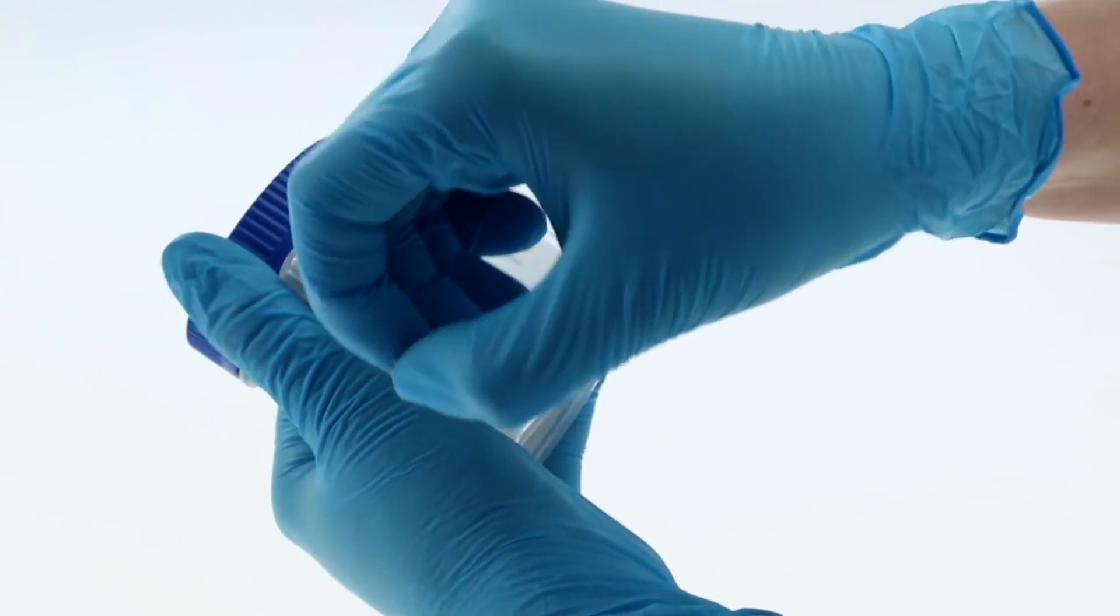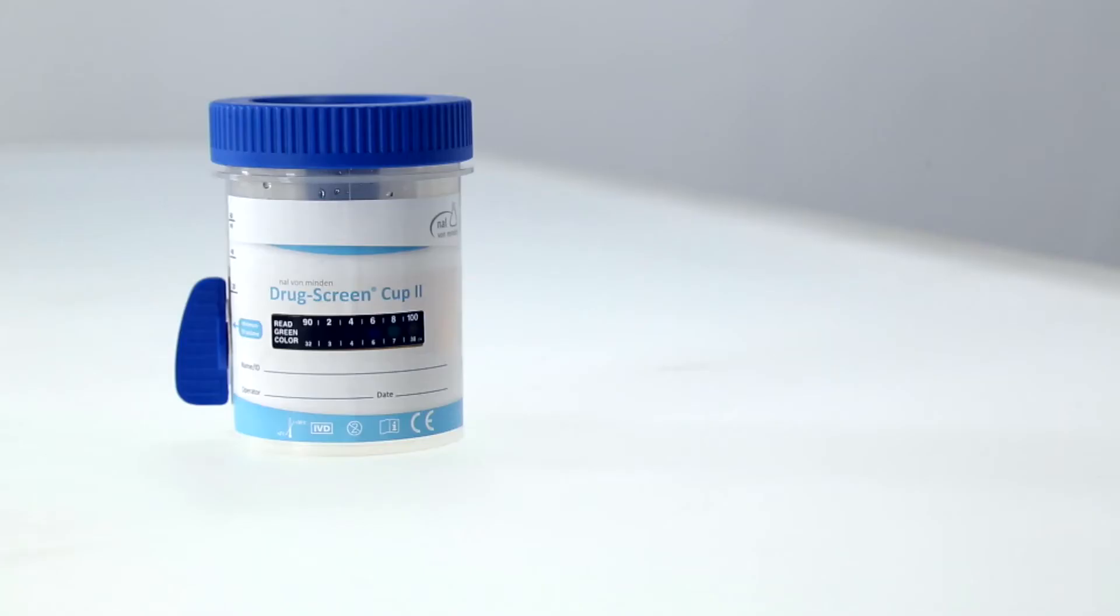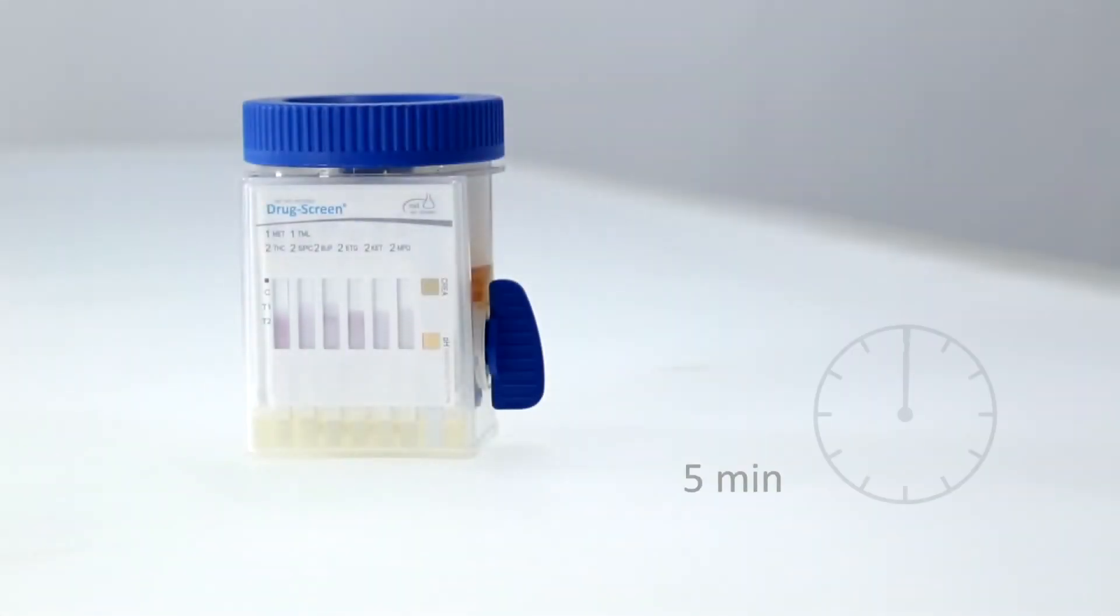Remove the peel off label and place the test on a flat surface. Check the temperature, marked in green, after 2 to 4 minutes. Read the results after 5 minutes.